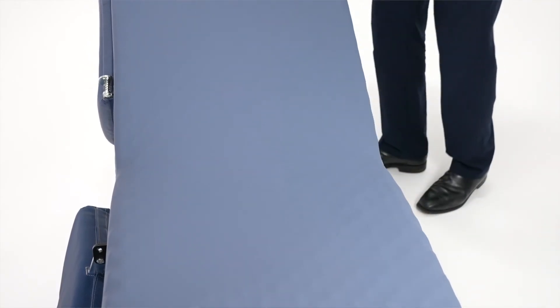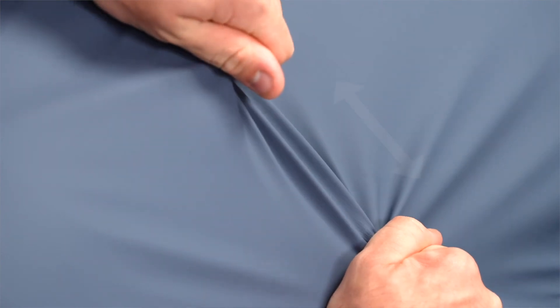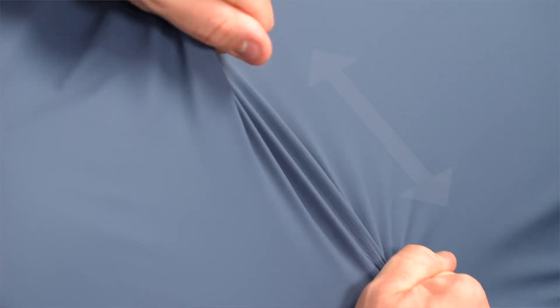As you can see here, the covers of the chair are made from a multi-stretch material which are also removable for infection control purposes. This makes it easier to clean and can control any infection that may come within the chair's environment.